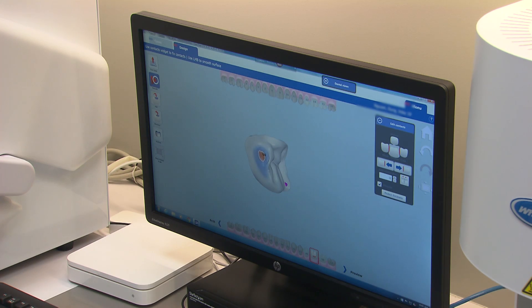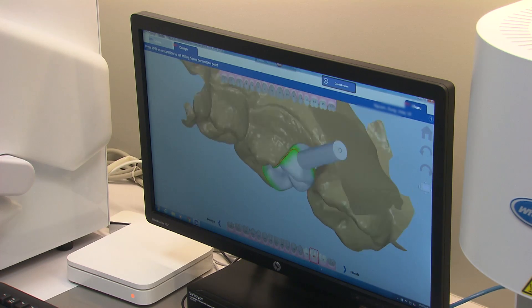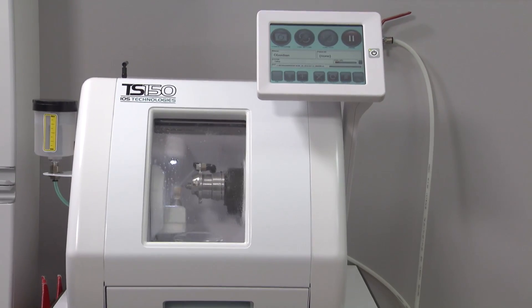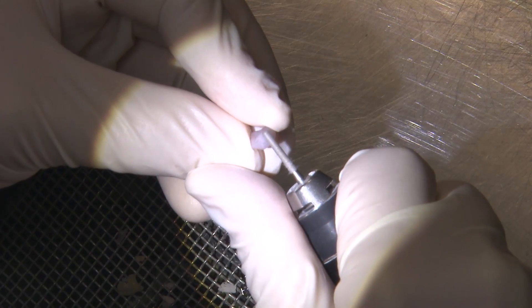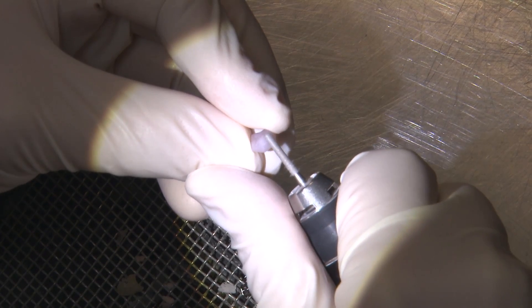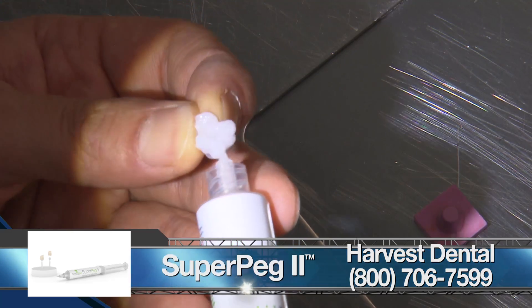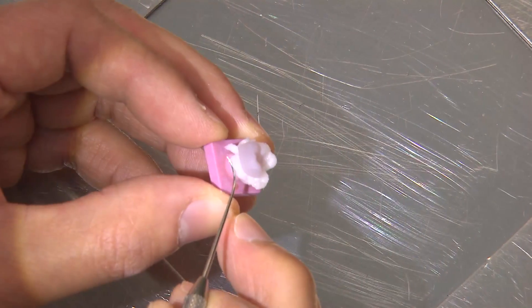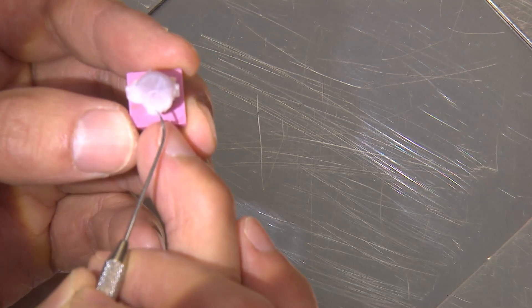In this case, I find 60 microns of proximal contact to be ideal. The last part of the design process is to set the sprue location. Because the distal lingual cusp was missing, I placed the sprue right in that area to avoid the contact and the margin. After about a 12-minute milling cycle, I use a slow-speed handpiece with a diamond burr to remove the sprue. Afterwards, I'll place it on super peg material — a putty that stabilizes the restoration onto the firing peg.